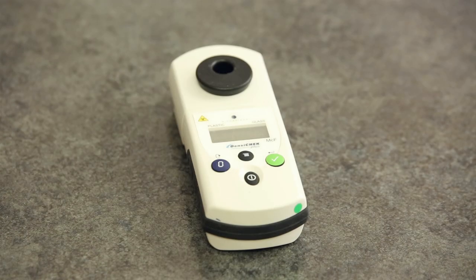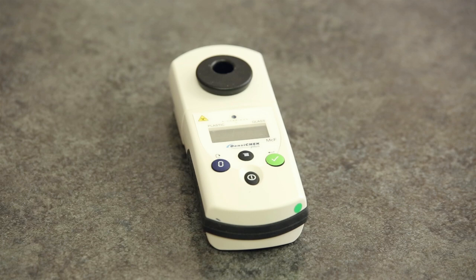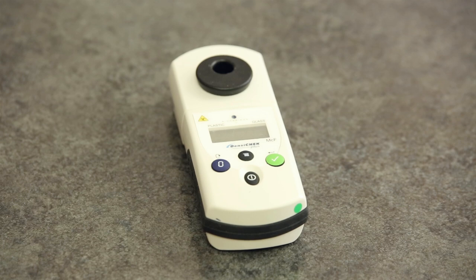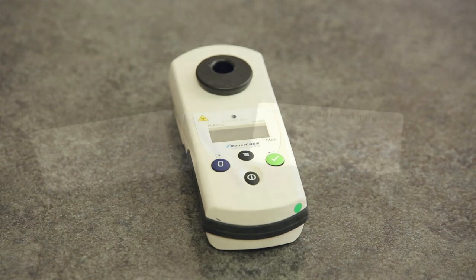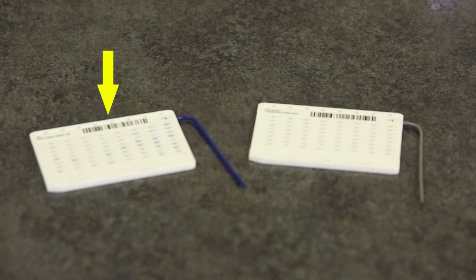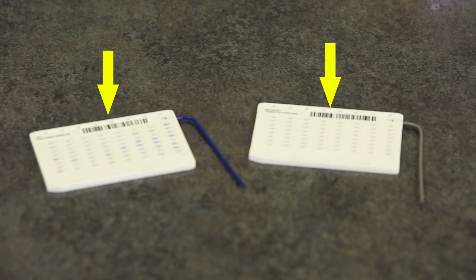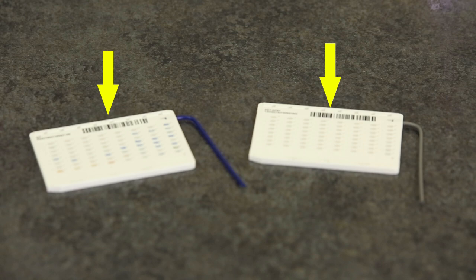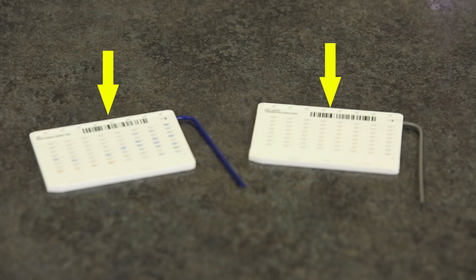When setting up isolates for testing on the VITEK-2 Compact System, an organism suspension is made using the DensiCheck Plus Instrument to achieve the turbidity required for the card type being set up. For ID card setup, this organism suspension is used to inoculate the card. For AST card setup, an aliquot from the ID suspension tube is transferred to an AST tube with 3.0 mL of saline.